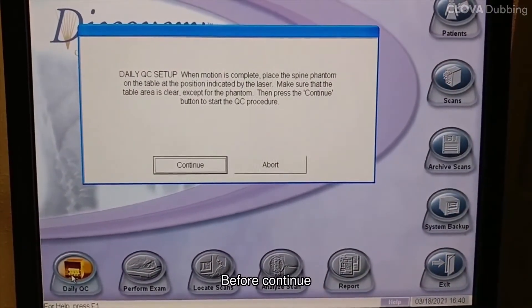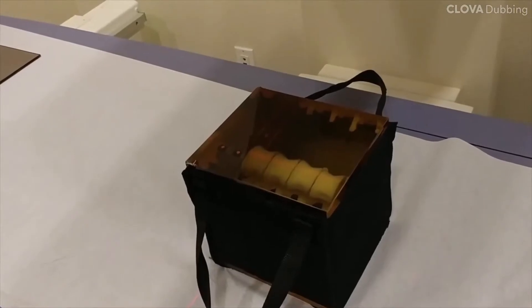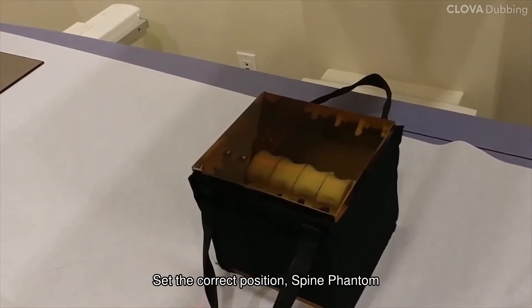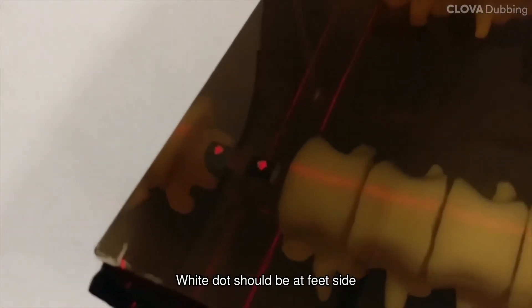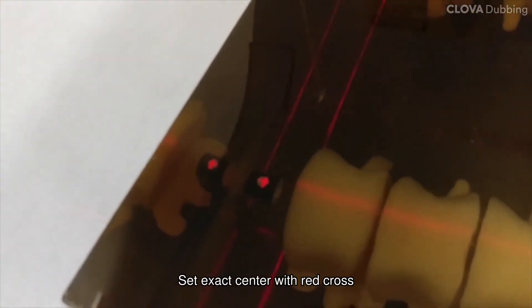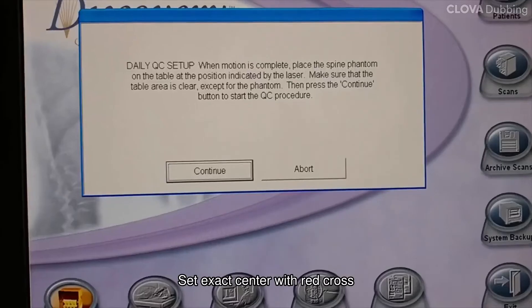Before continuing, set the correct position of the spine phantom. The white dot should be at the feet side. Set the exact center with the red cross.